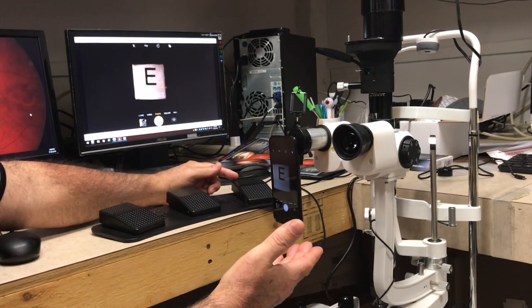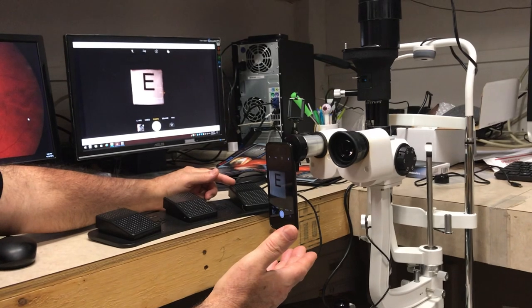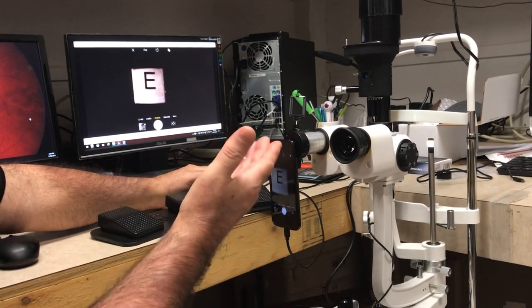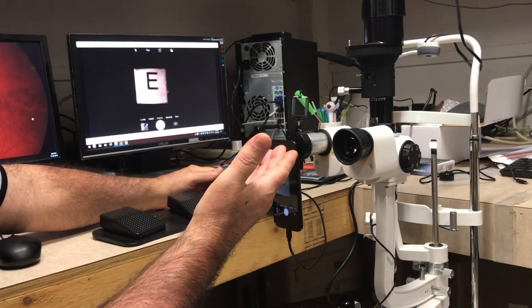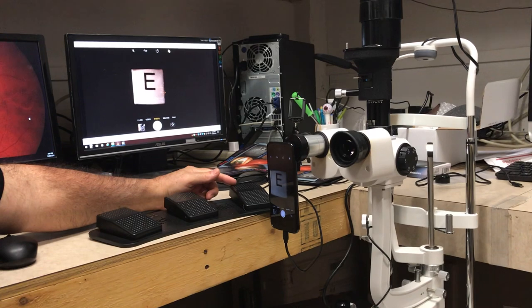No longer needing to store your images into your iPhone or pull it out of your pocket, we have it hooked up in an eyepiece adapter.